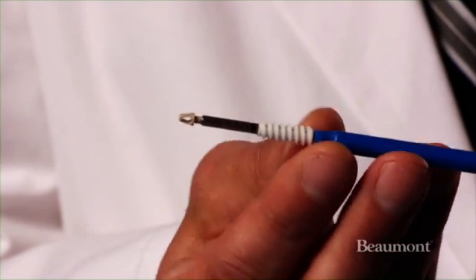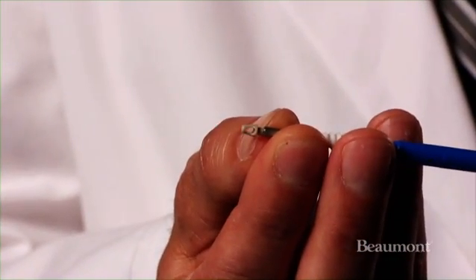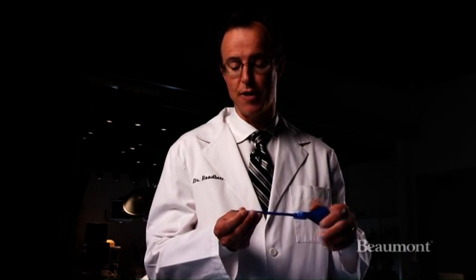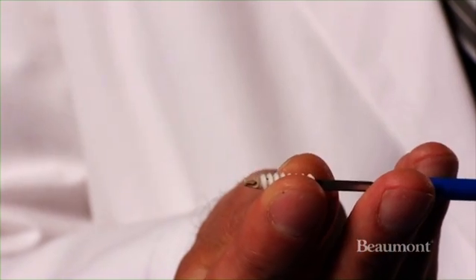This is an example of a screw that would go into the bone. You can see the material right here — this little plastic piece would actually go into the bone, and then this would slide over this metal structure, over the stitches, and then lock that in place.